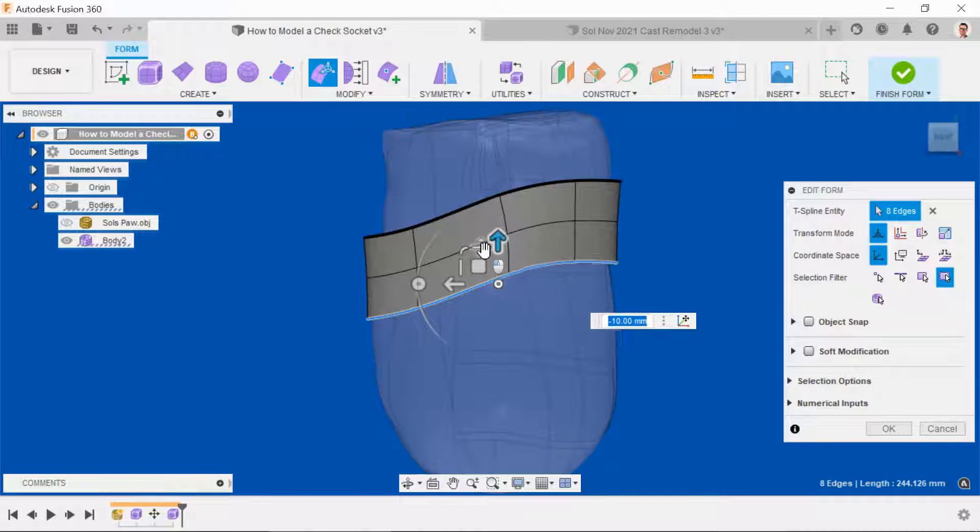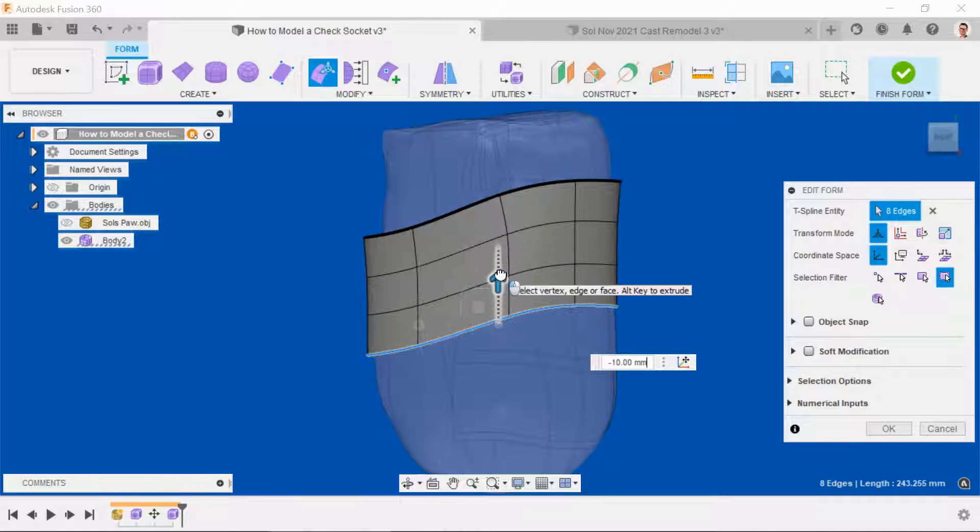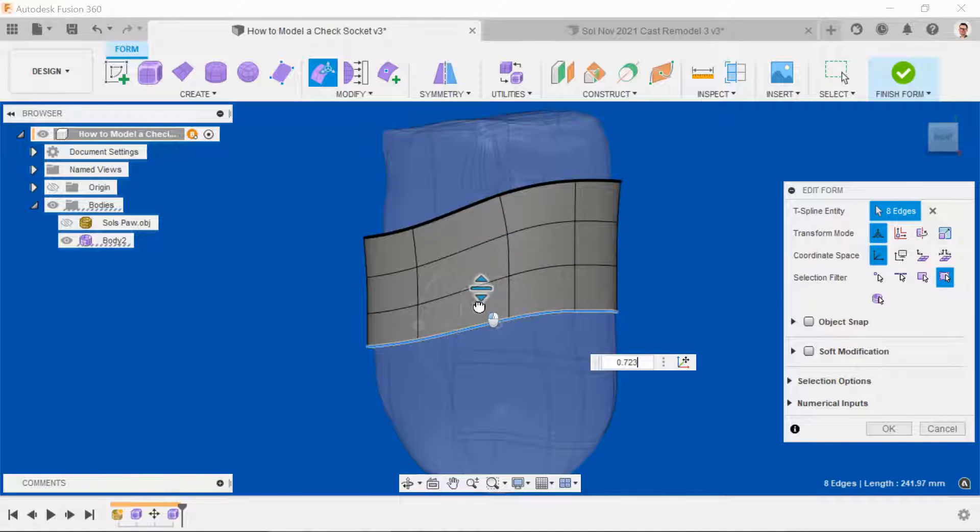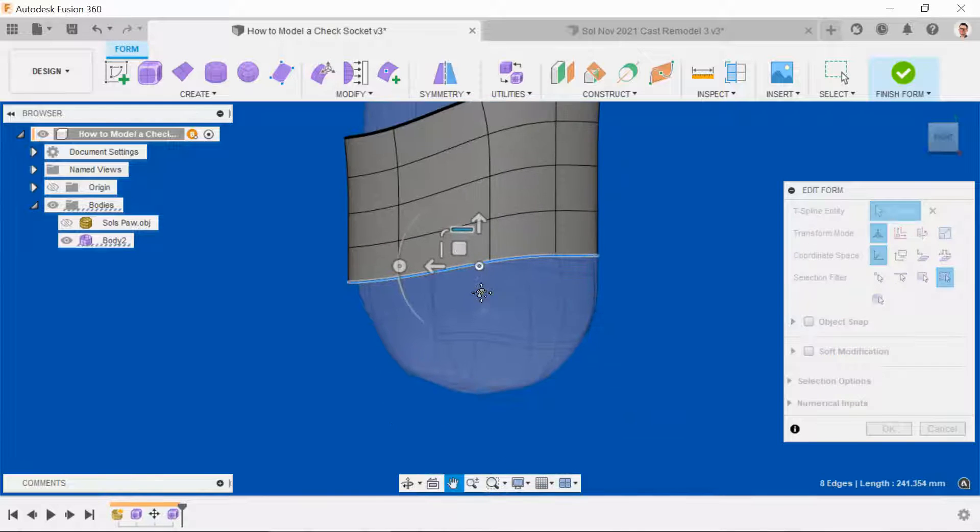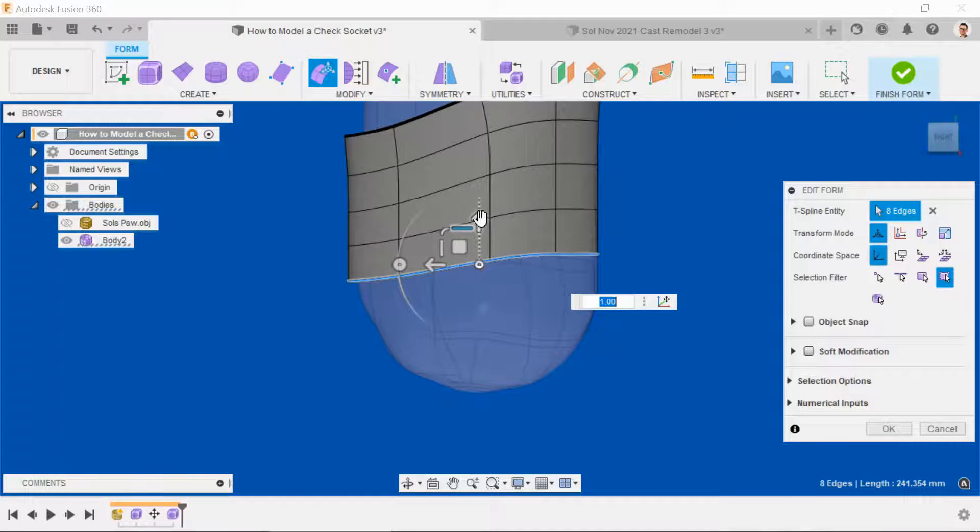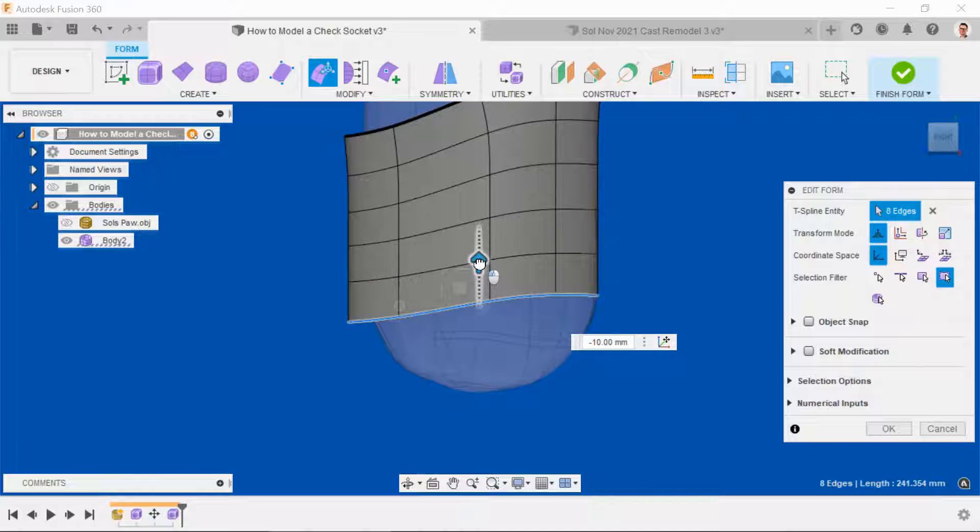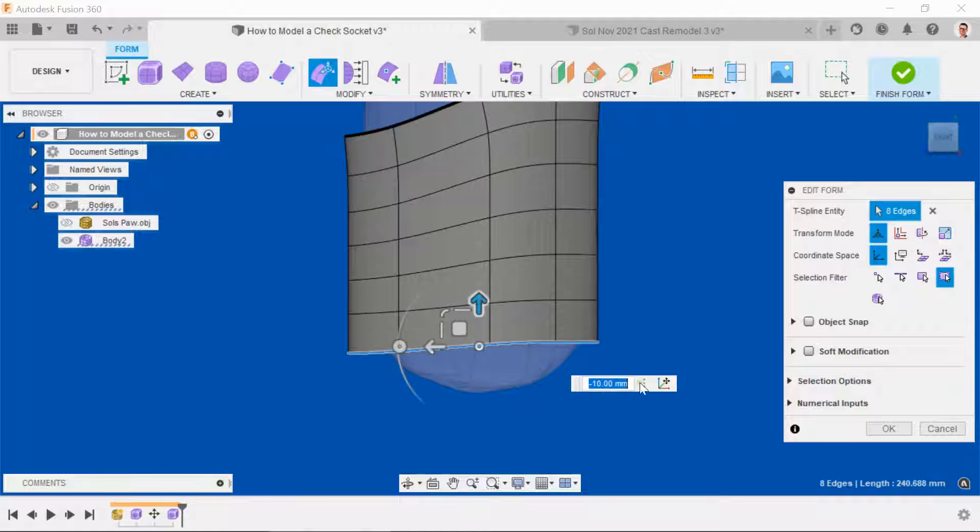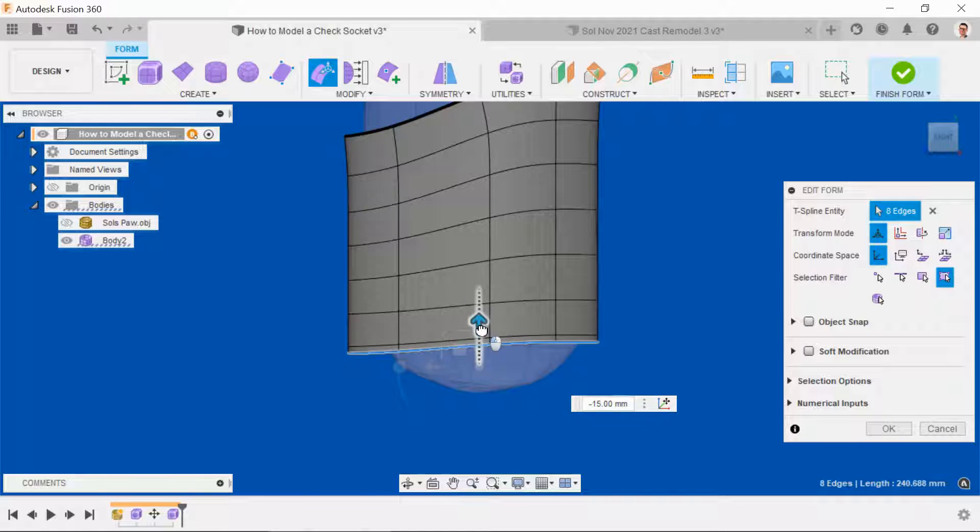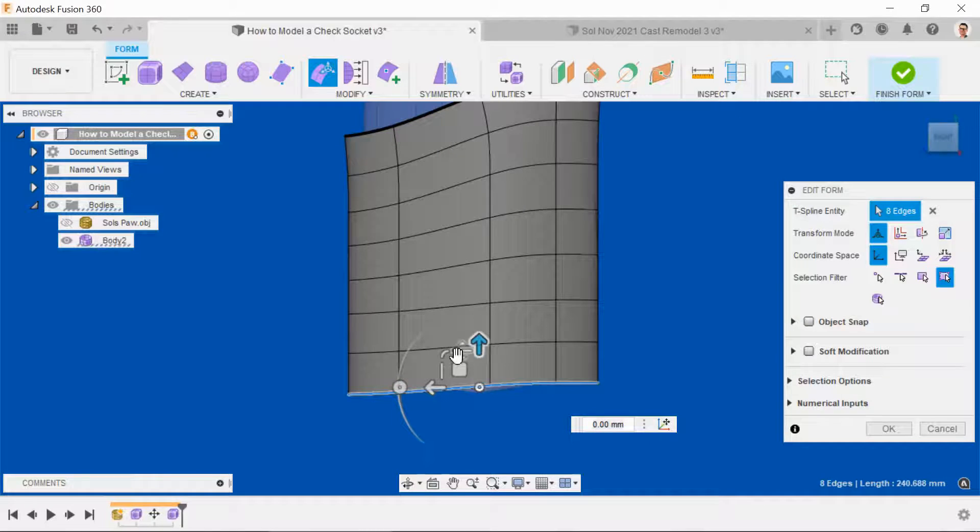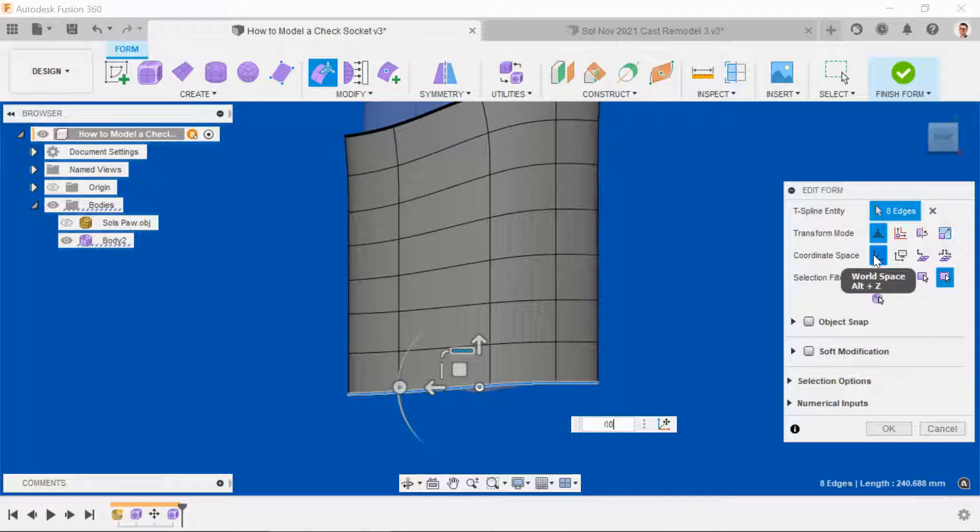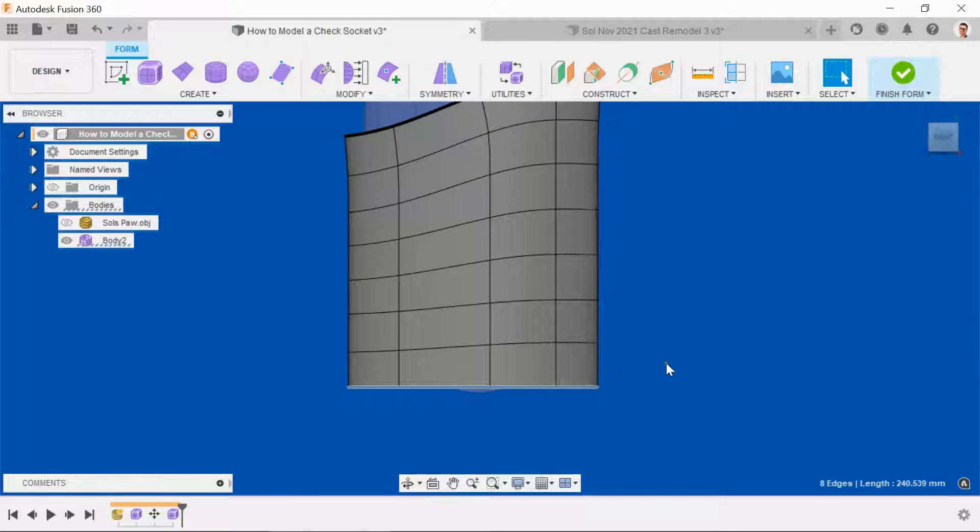Once we've created the new geometry, we just want to scale it slightly in the horizontal axis, do the same thing, scale it some more, and so on all the way down the socket until we're almost horizontal at the bottom. For the final row, we will grab the scale bars and enter the number manually .0001. That's as flat as we can get.